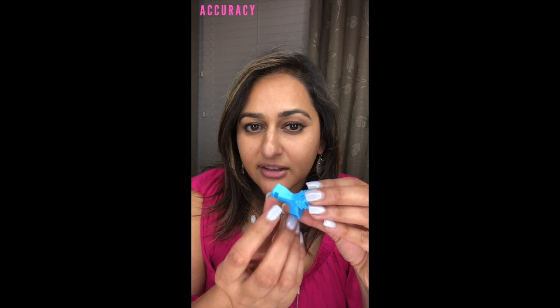And if you watched the previous video, you'll know there are three reasons why we use Munchies. One is accuracy — we're trying to get that aligner to seat all the way down. There's a little slot for your teeth, so we're not only seating the aligner up, we're also seating it from the front and from the inside. What we're doing with Invisalign or other clear aligners is using plastic to move your teeth, so if the plastic isn't really grabbing onto that tooth, the movement we're trying to accomplish just isn't going to happen. The Munchie really helps with accuracy.